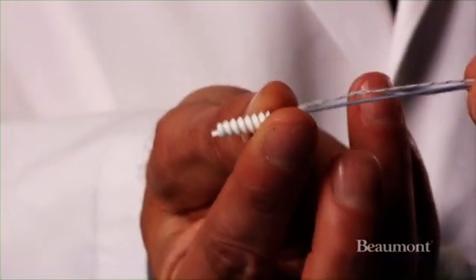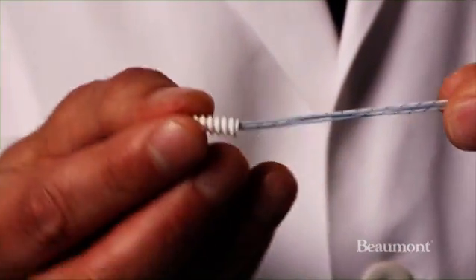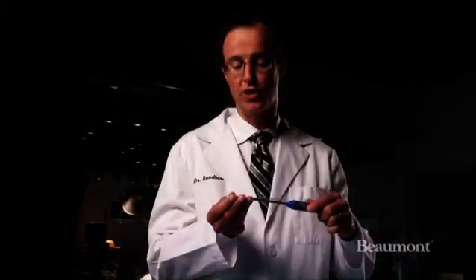And one more example: this is another screw that would go into the bone. In this case, the stitches are built into the anchor itself. So the screw would actually go into the bone and lock in place, and once it's locked in place, these stitches would then be pulled free.